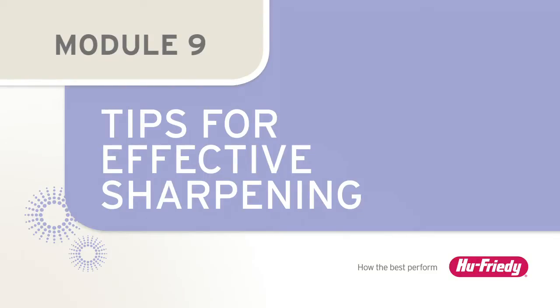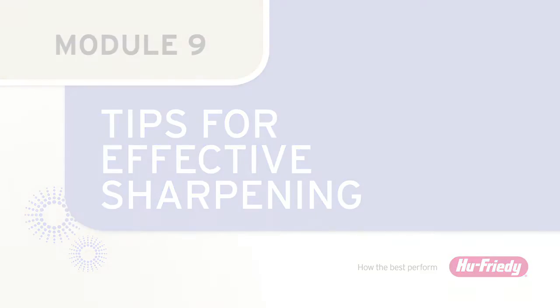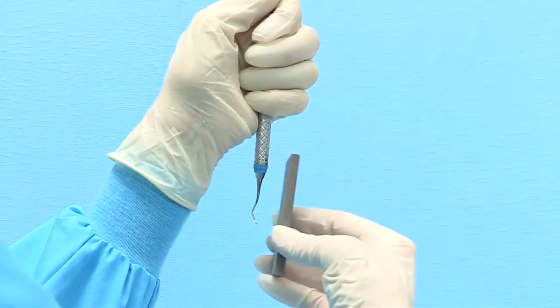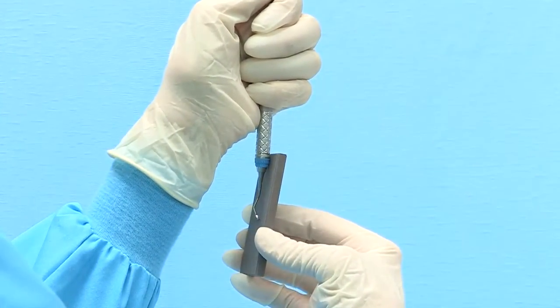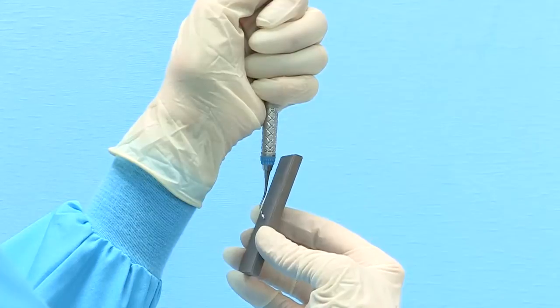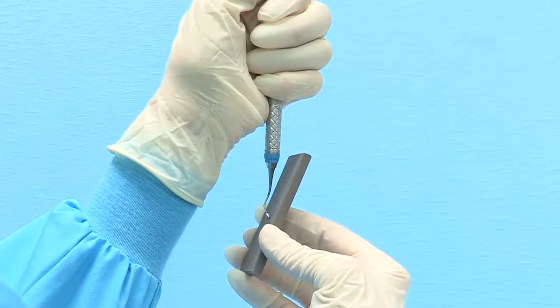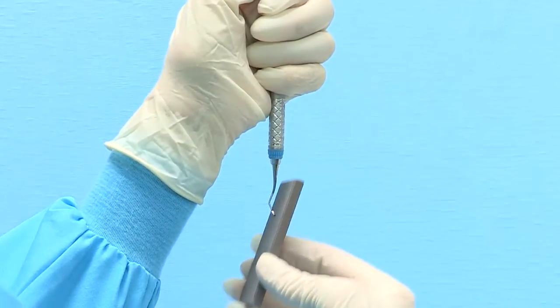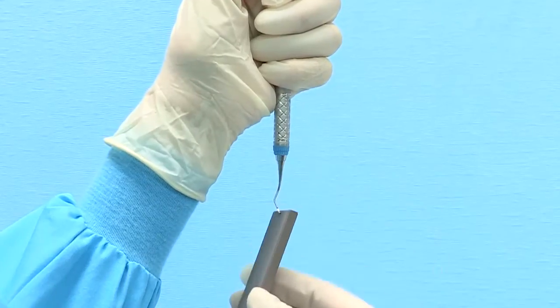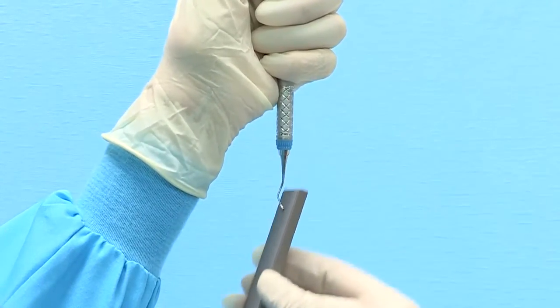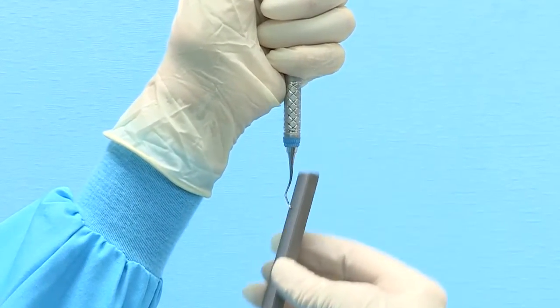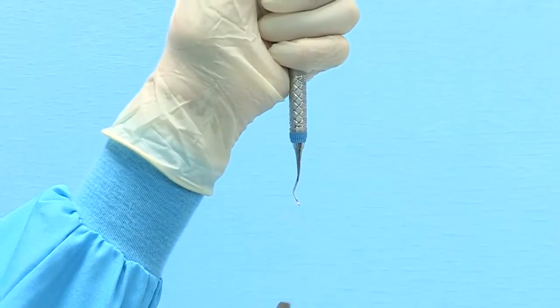Tips for effective sharpening. Sharpening, like hand scaling, is a skill where expertise is developed with practice. Frequently sharpening instruments will help ensure that this skill is developed quickly. However, even the best clinicians occasionally encounter difficulties sharpening. Some of the most common sharpening difficulties will be reviewed here.